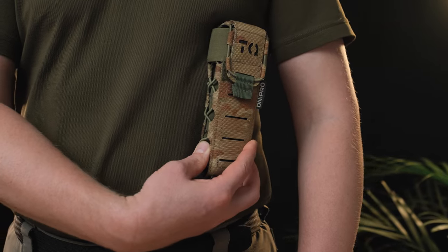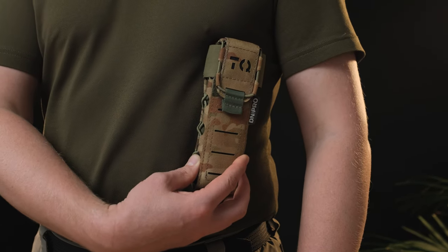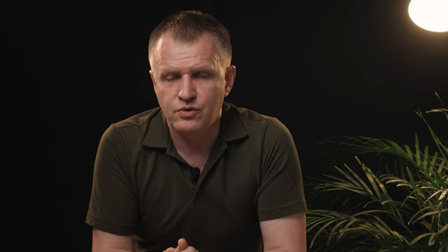Second recommendation: there should be two tourniquets attached on the armor, and they should be in tourniquet pouches attached to the armor. This will protect them from damage in an emergency. A normal pouch is also tactical — a tourniquet pouch protects you from the banal loss of the tool. Attaching it with elastic bands or tapes always risks it being pulled off the armor harness or easily lost during battle, especially for assault units.